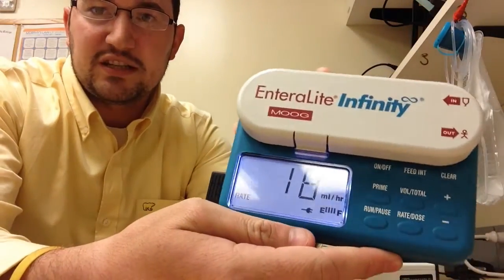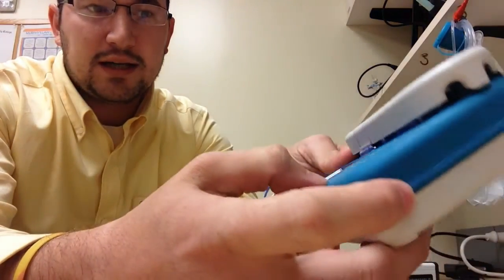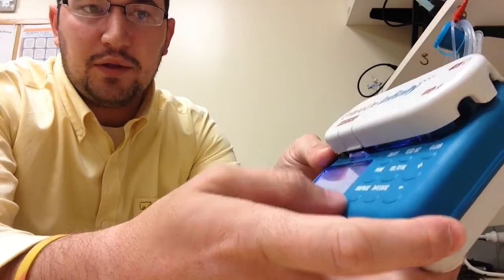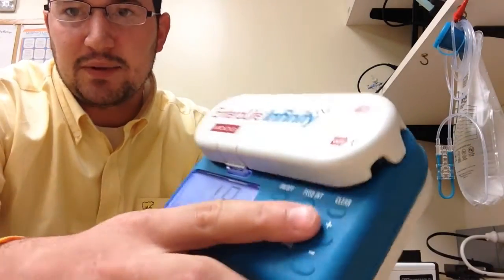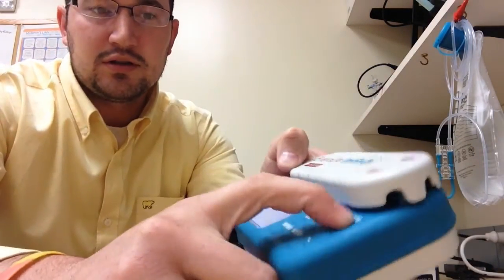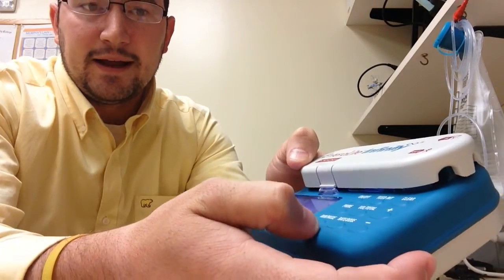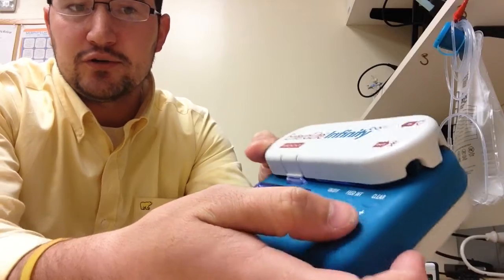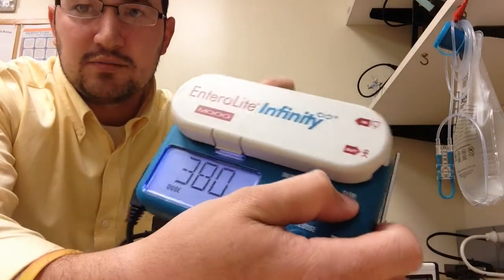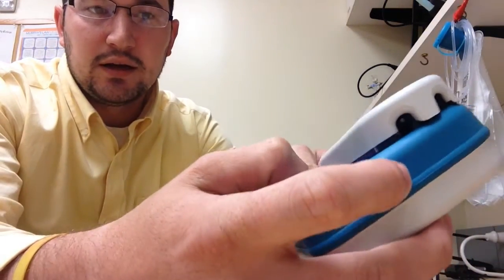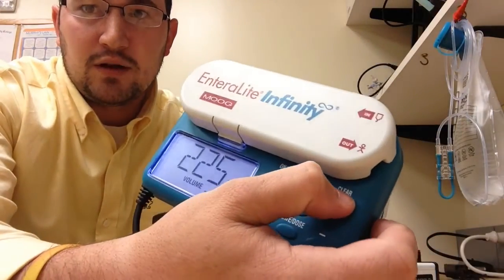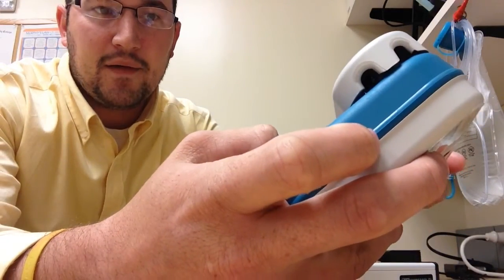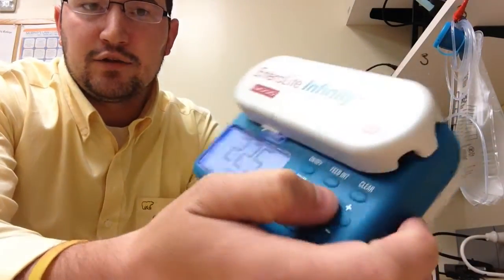And this pump was previously used, so what we're going to do is clear out the data, which clear buttons up here in the corner. So just hit clear. And then you also want to clear out your dose. So it comes up and just hit clear. And your volume, you want to clear that. And then your volume total, you want to clear that as well.